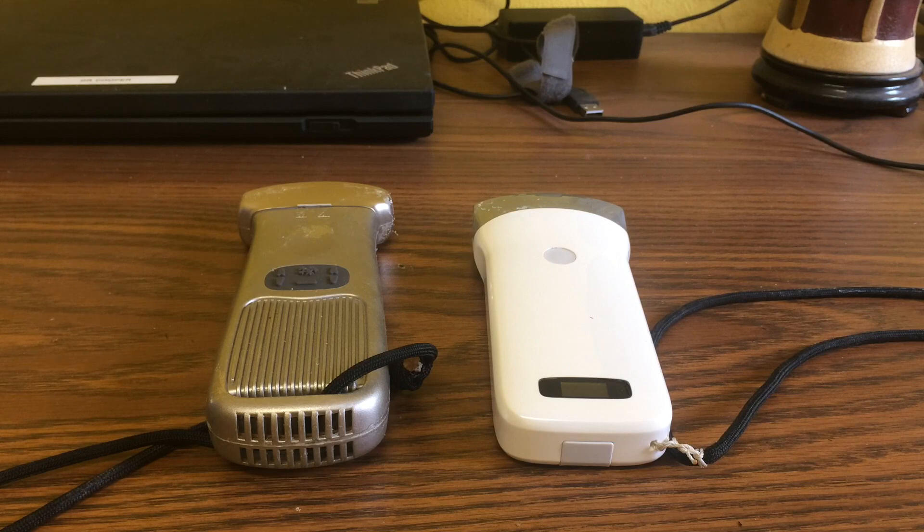In this video I will review two Chinese-made wireless ultrasound units. This is a very exciting new technology and I think it will become the future of point-of-care ultrasound for the clinician. I am a general surgeon working in Congo and I rely heavily on ultrasound, because I have limited diagnostic options and ultrasound is cheap and readily available.